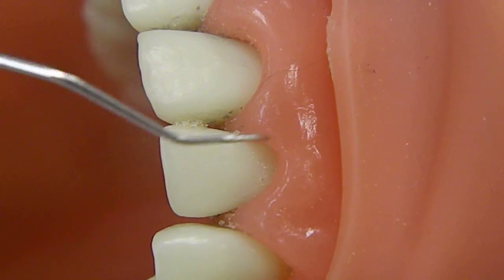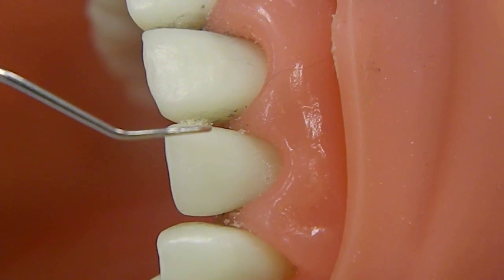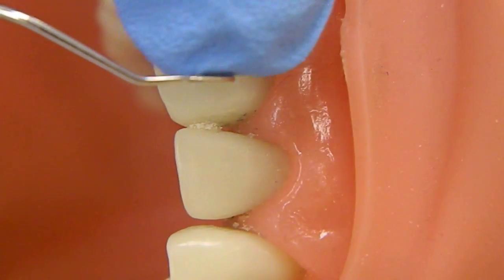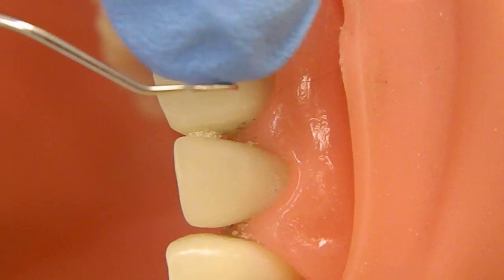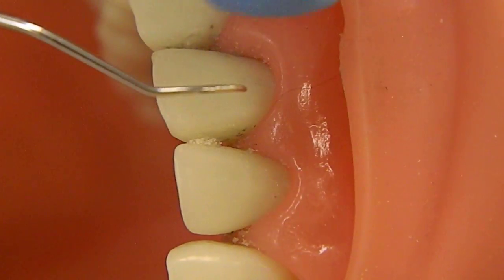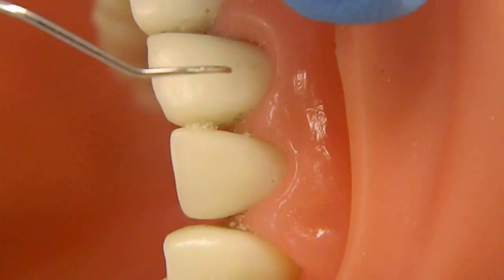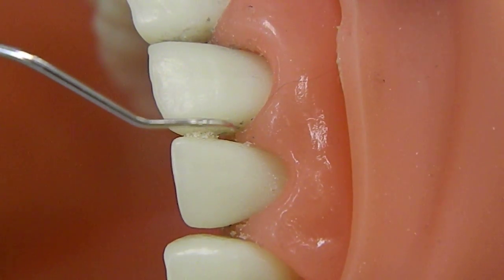So how the tooth is positioned in the socket, and looking at the terminal end of the instrument. So that is the last bend in the instrument. This is your functional shank. This is the terminal shank. So we're always looking at the terminal shank when we're determining the proper end of the instrument.